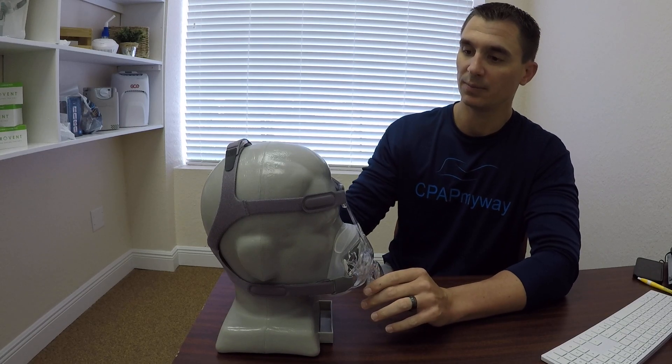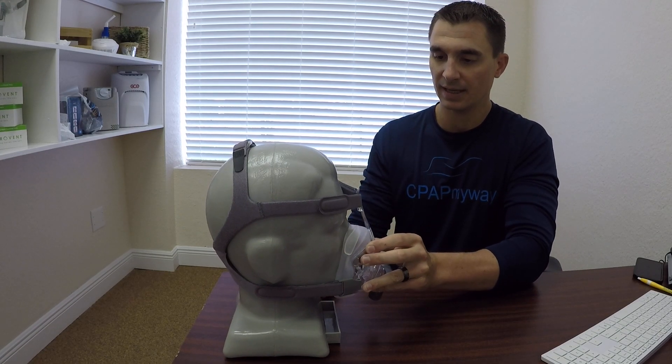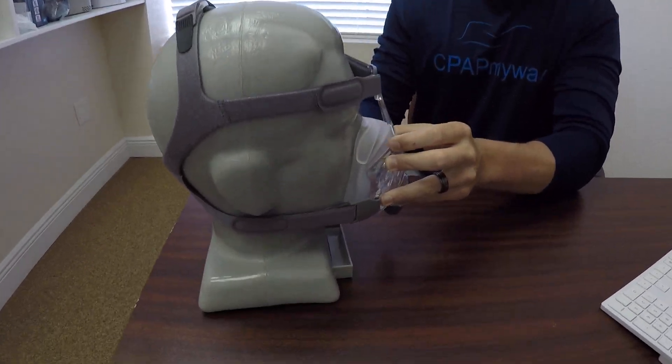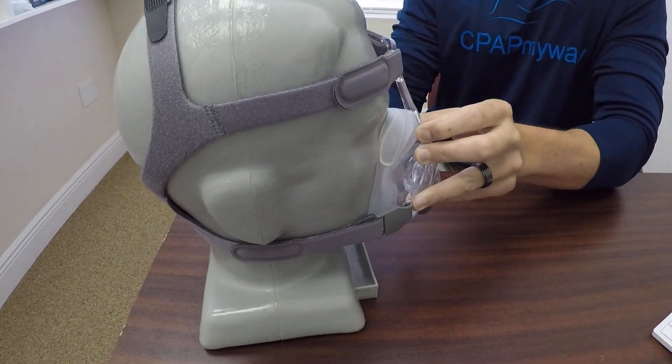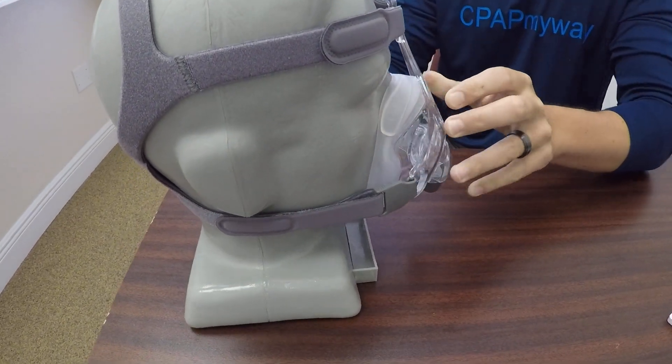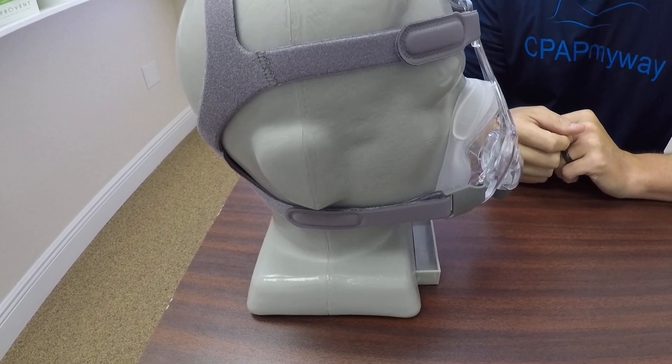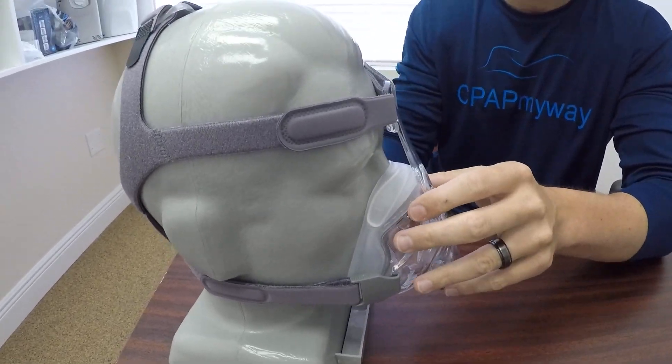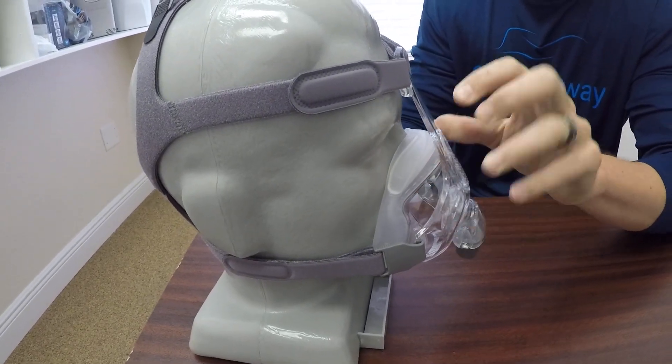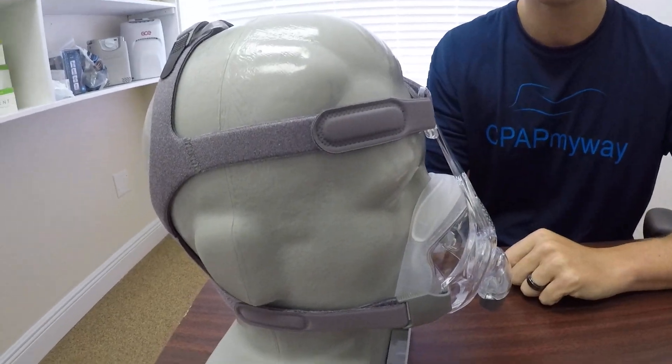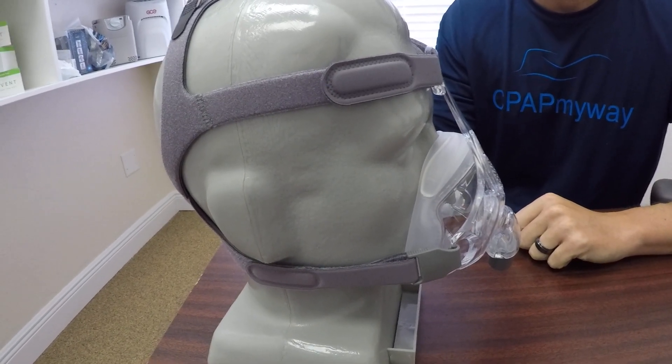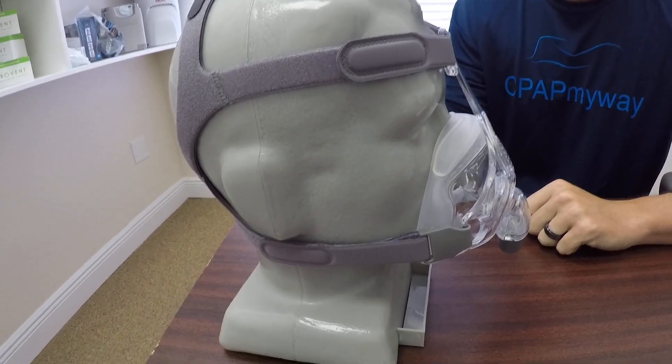You'll notice first of all on the mask itself, there's a little bit of articulation up here on the bridge of the nose. It gives you a lot of pressure relief on the bridge of the nose, which is really nice, especially for people that might have deeper sides of your nose. It certainly can be much more comfortable on this mask.